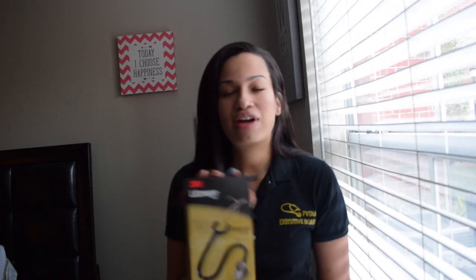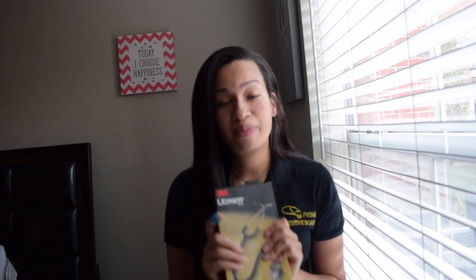Yes, my box — I don't know if you can tell my box is a little messed up. I didn't want to do a review on this without actually using it first. I'm done with clinicals for the semester, I've used this stethoscope, and I'm absolutely in love with it.